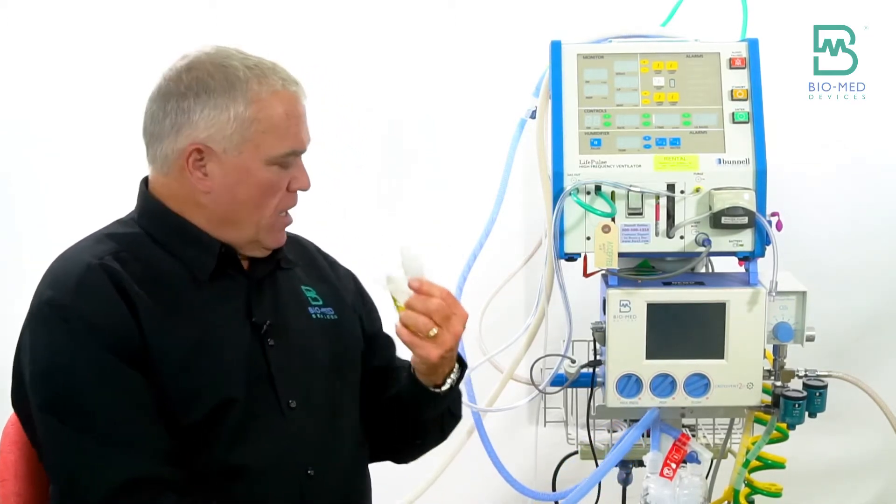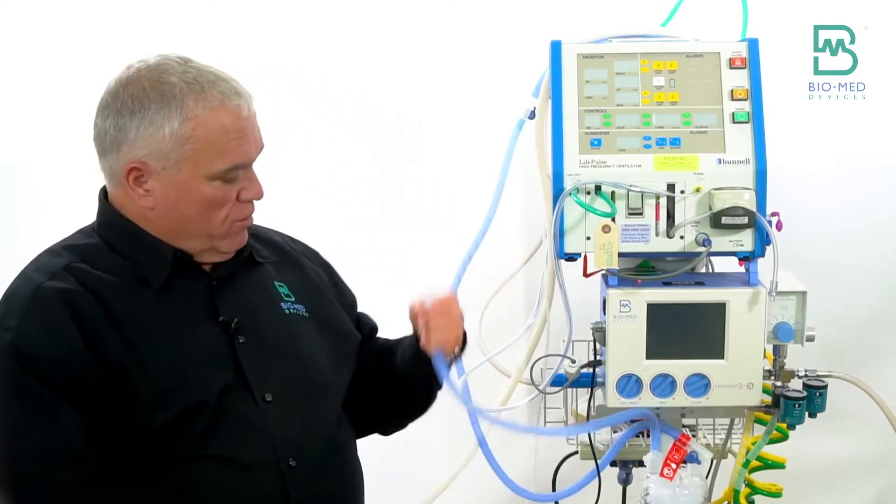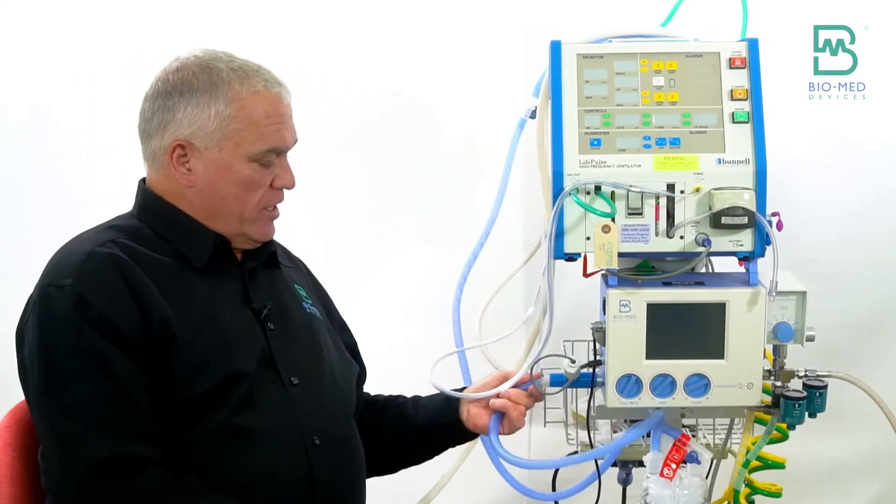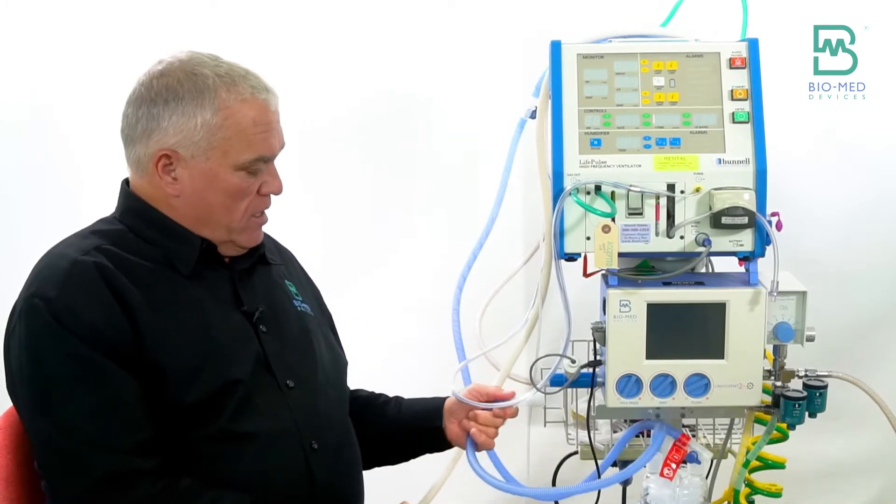You're just going to need a couple of these. The first one will be to make this connection here where the oxygen analyzer is.